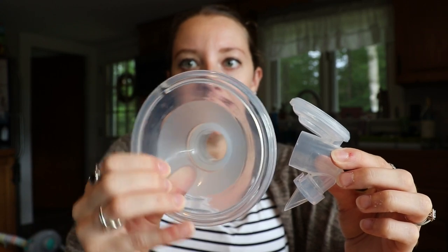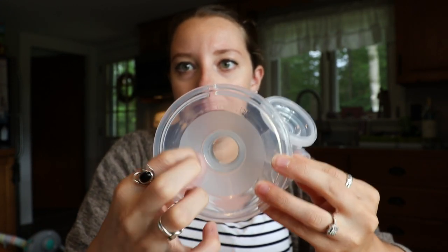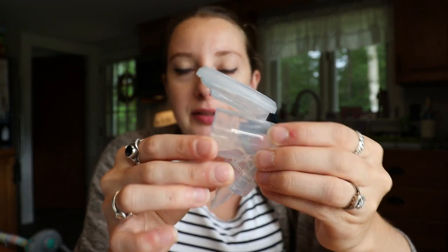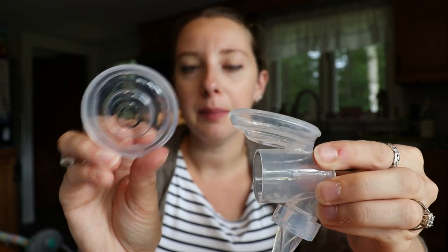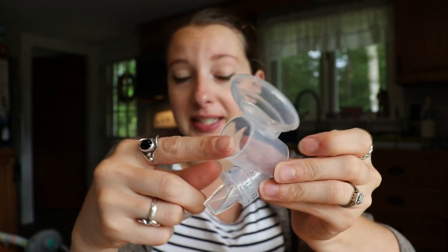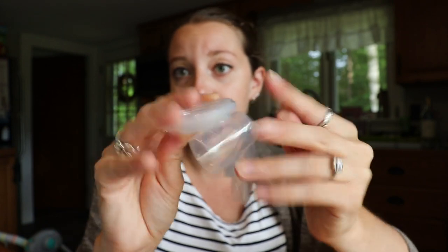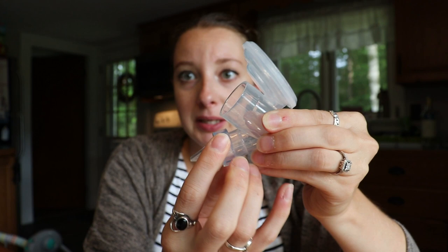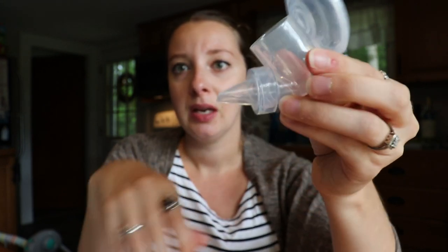I just moved it because it was getting a little dark. This piece does come off and it's really easy to clean. Some of these do look a little different — like this one has a frosted middle here. I have three of these pumps now and some of them don't have this frosted piece, but it's just to make it look interesting. This is the collection cup, so to speak. Here's the closed system portion — you have the membrane up here which just sits on there, and then here's your duck bill. There really isn't that much to clean — this is pretty easy to clean. The duck bill always needs to be oriented correctly — it can't be lying flat, it needs to be upright in order for the whole system to work.